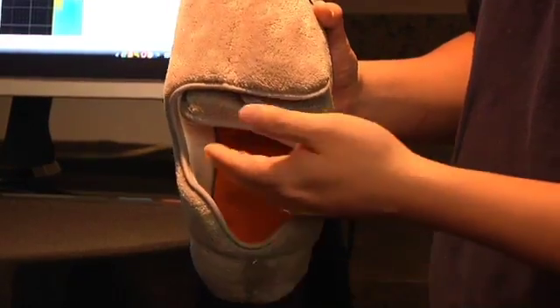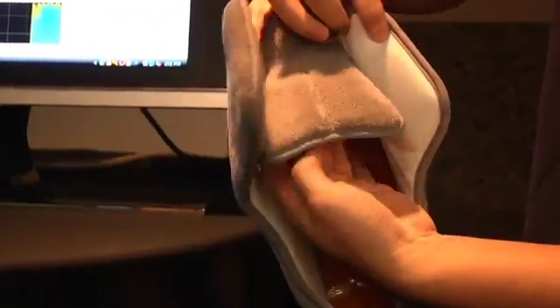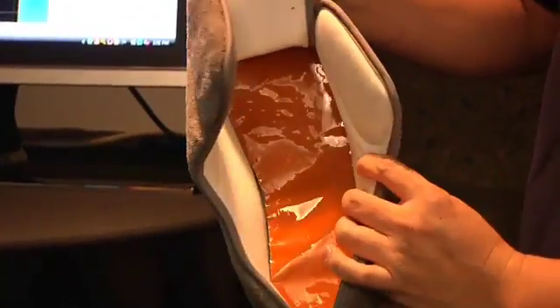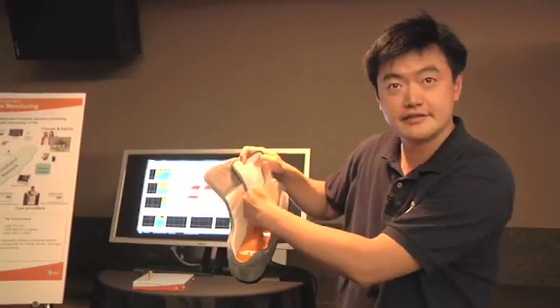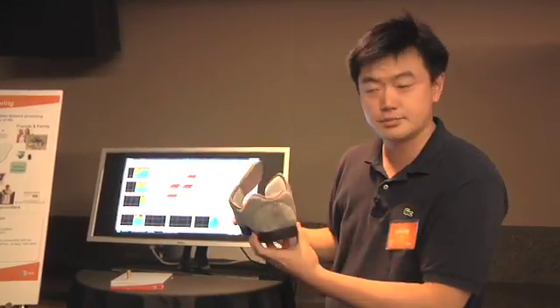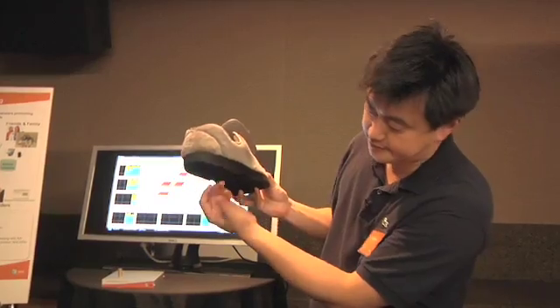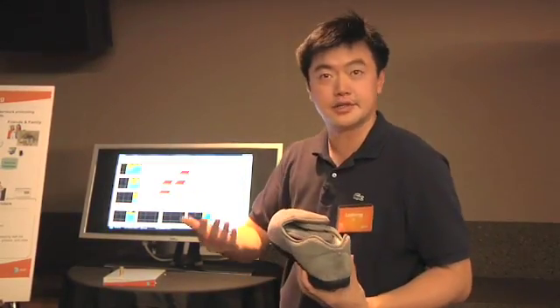So we will be giving patients slippers like this. It's very easy to put on, very cushy. Inside here we have a special insole with sensors, pressure sensors embedded. Also there is a communication board inside this part of the shoe which contains an accelerometer and ZigBee communications.